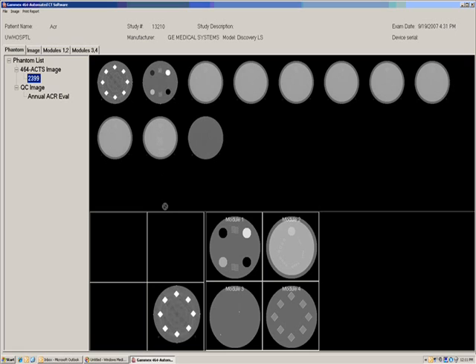Once this is done, we are ready to display and inspect the four target images by clicking on the Image tab.